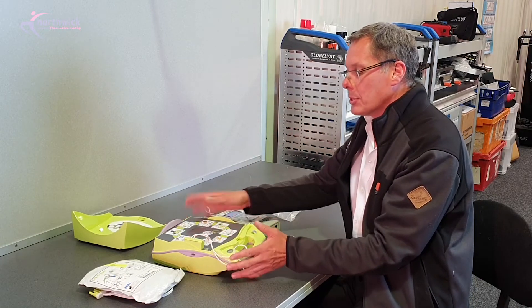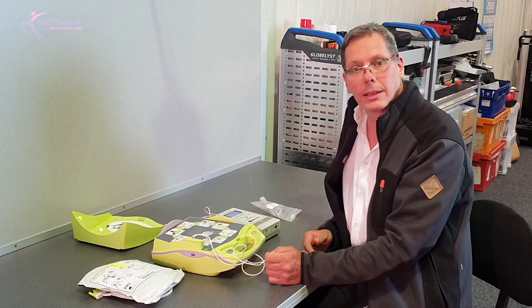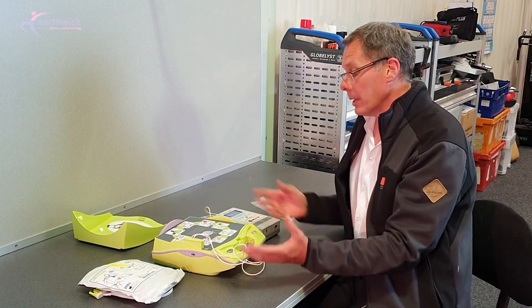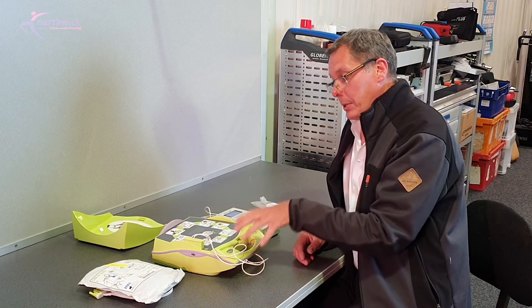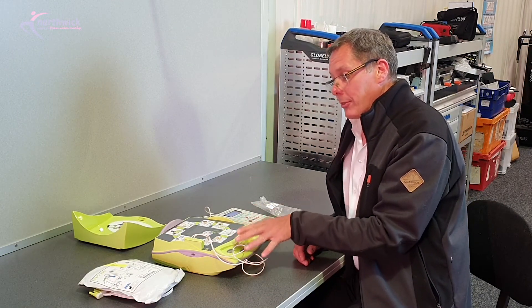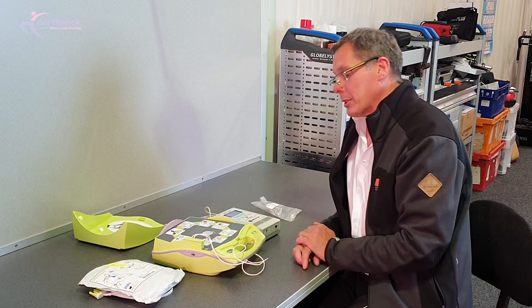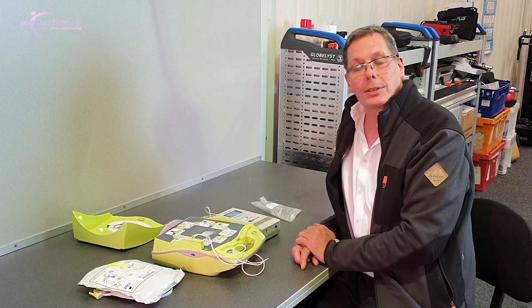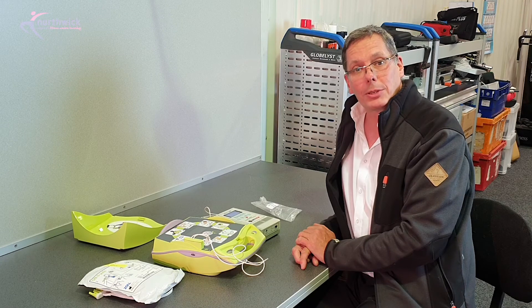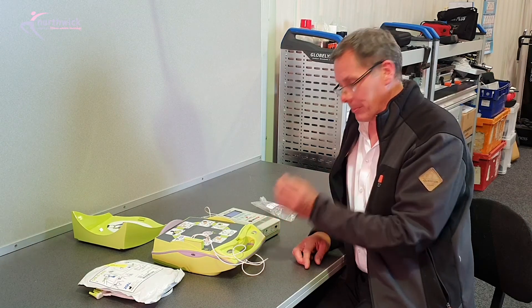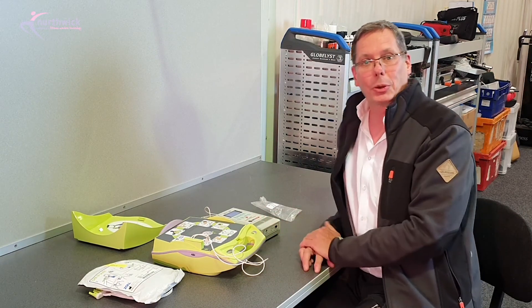Nothing else, you've been able to see the full sequence of the AED and get a feel for what it would do. So it's worth maybe getting your staff involved and showing your staff and the people who are responsible for these devices just what they do, so that if they need to use them, then the whole thing's not a shock and a surprise.